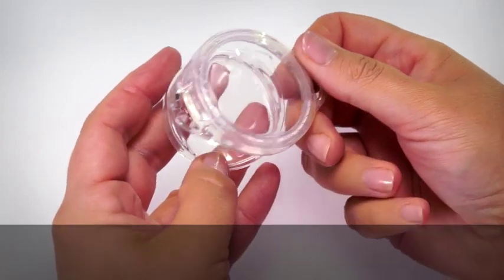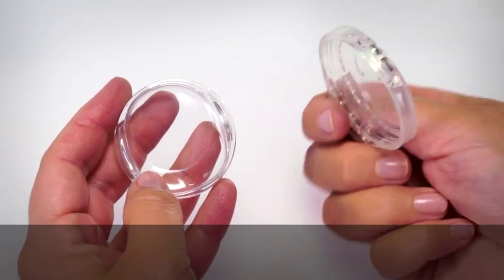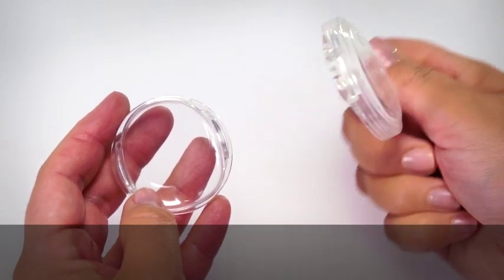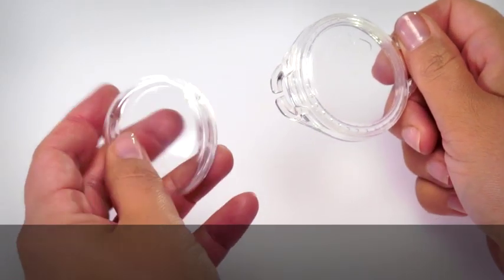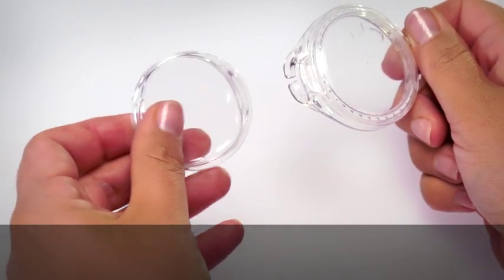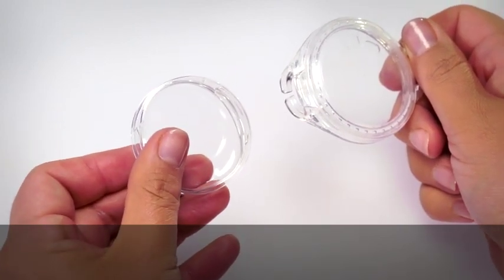Check both halves for damage such as scratches or tears or contamination such as sand, hair or sunscreen. If it's damaged, use a new Aqua Plus.